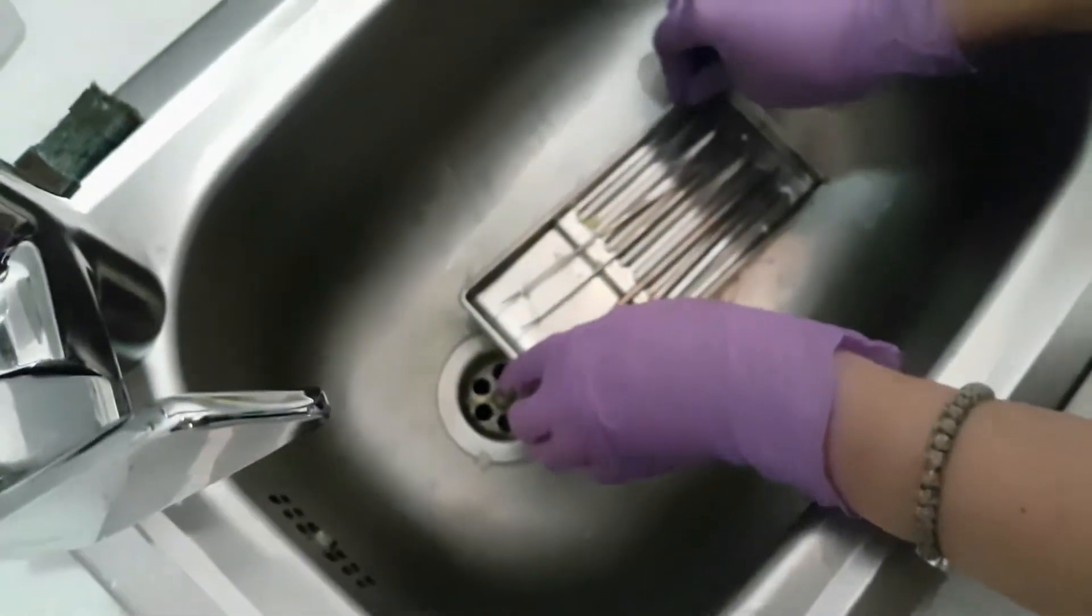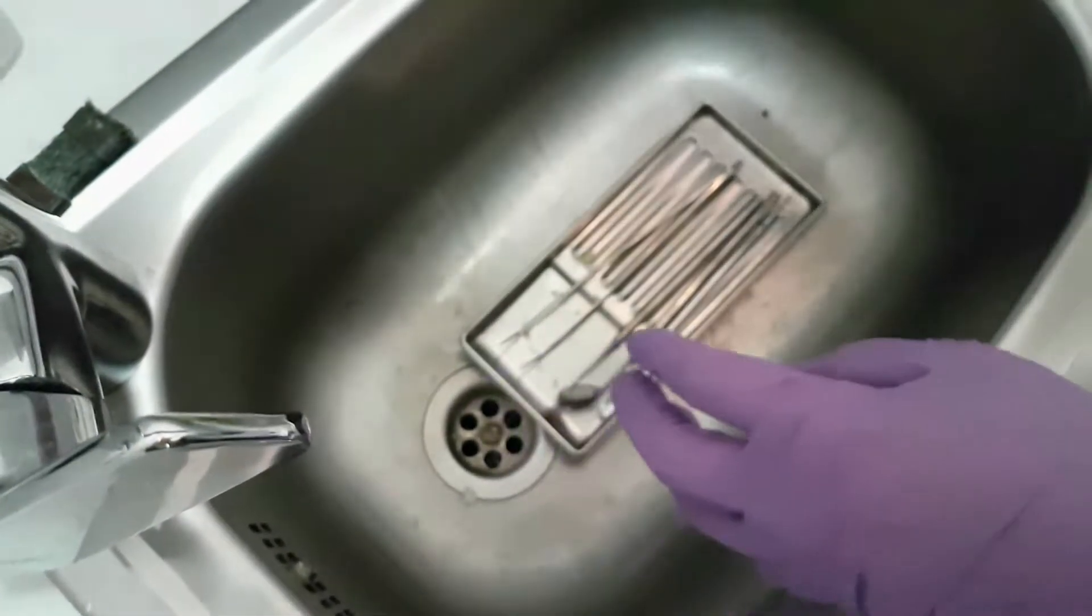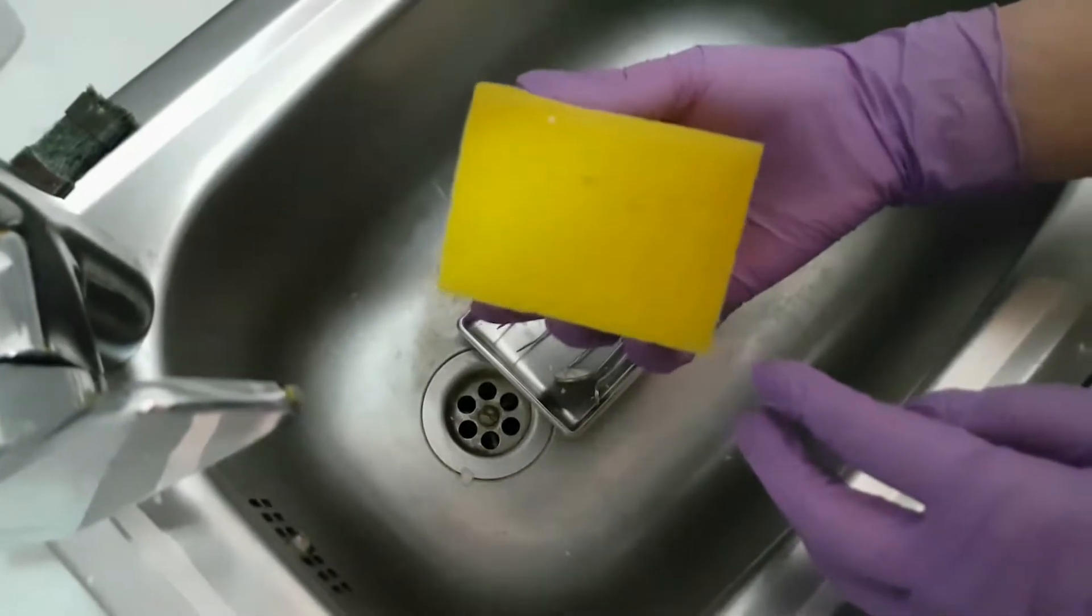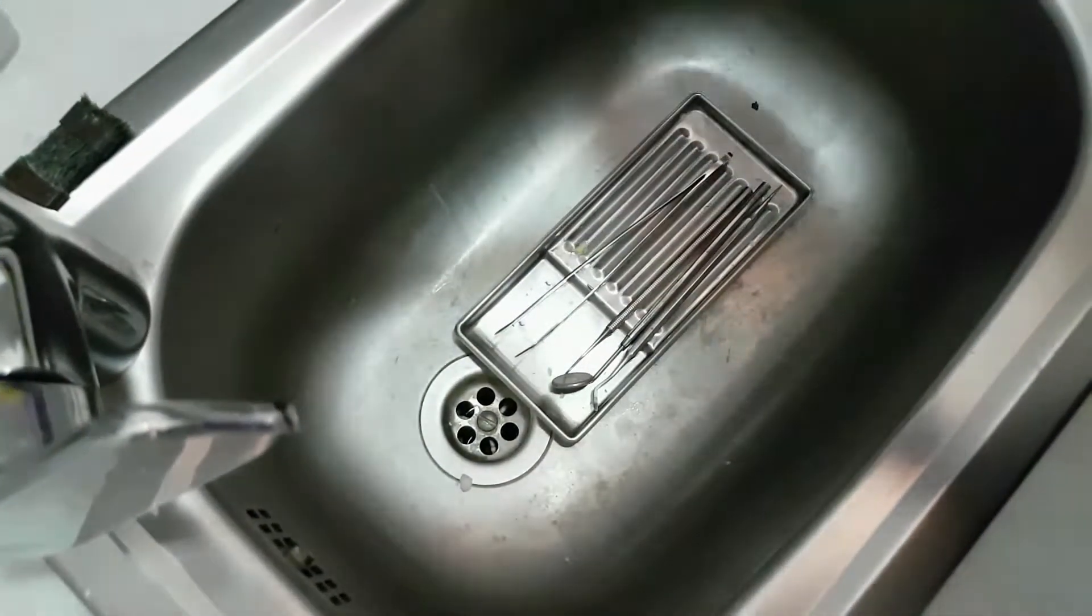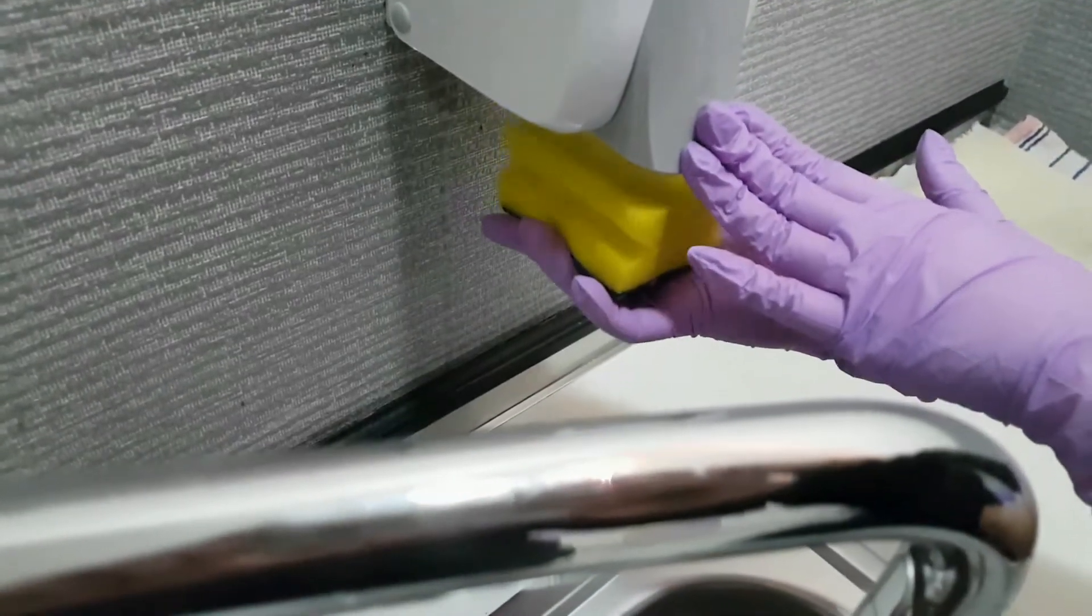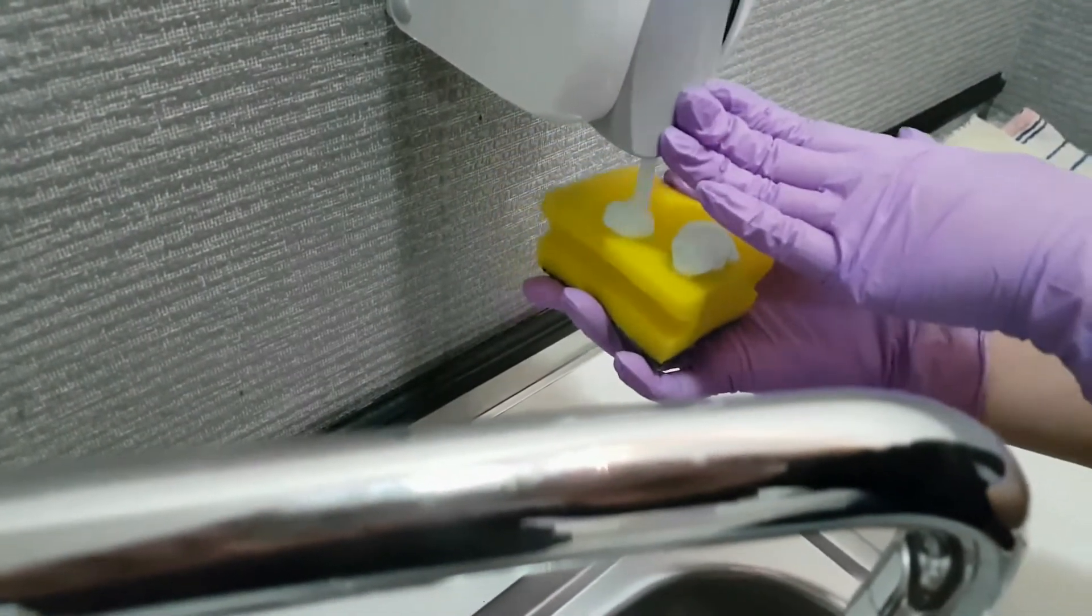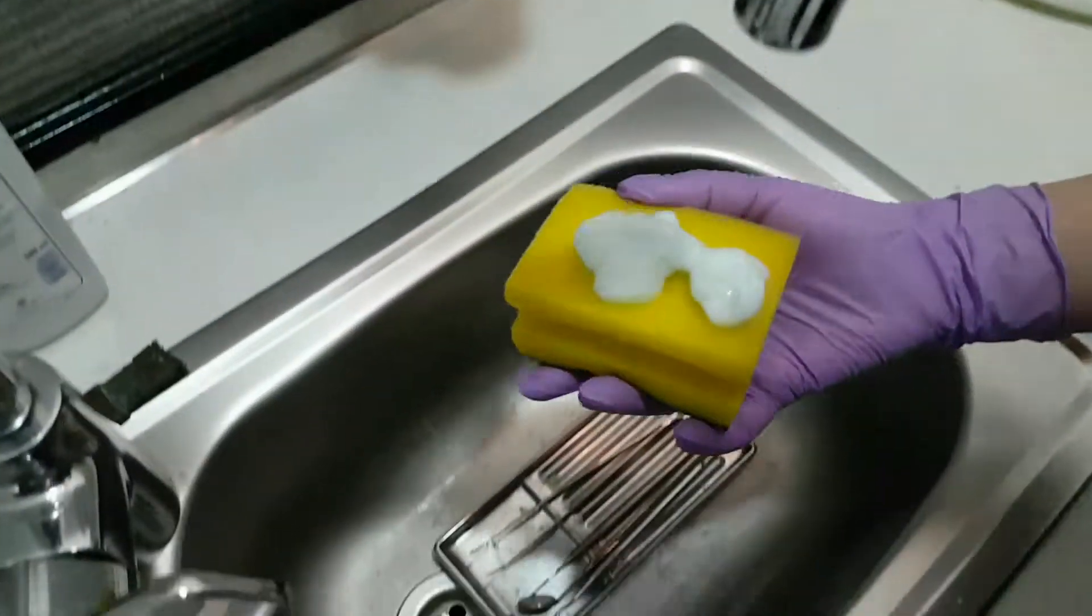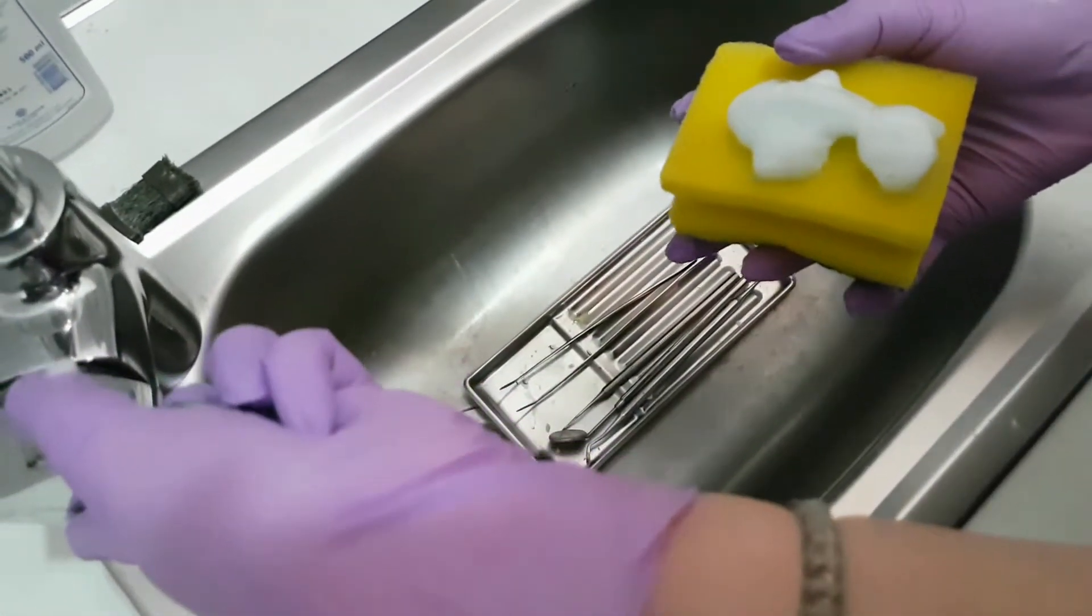Next we wash up every instrument with soap and a sponge. This is the first step of the disinfection.